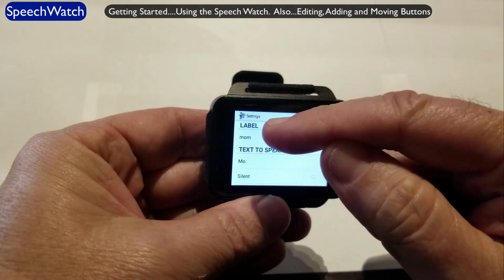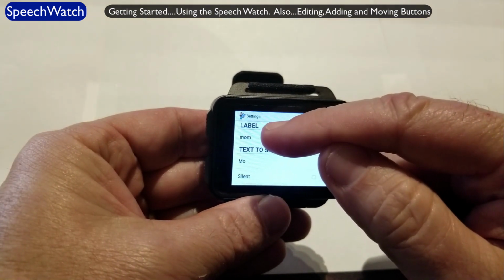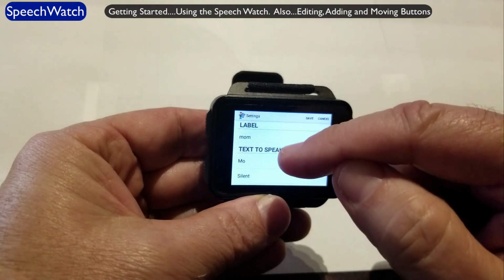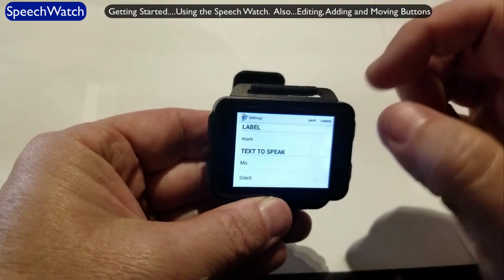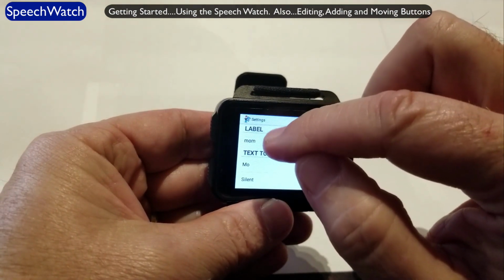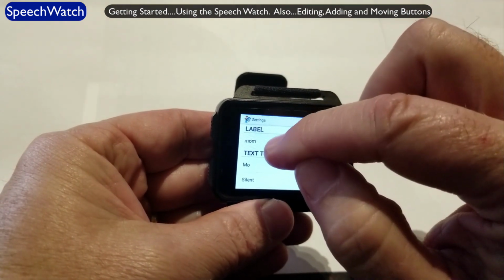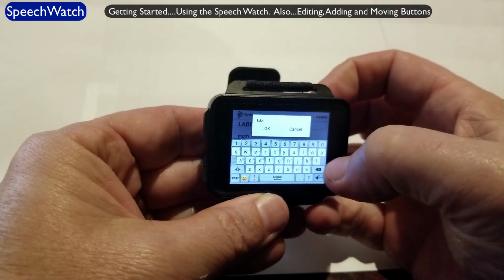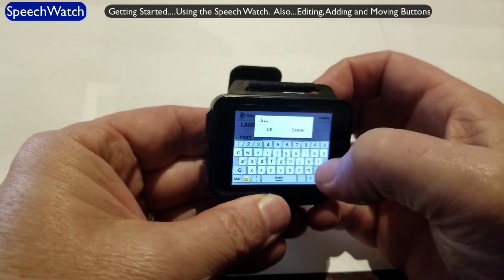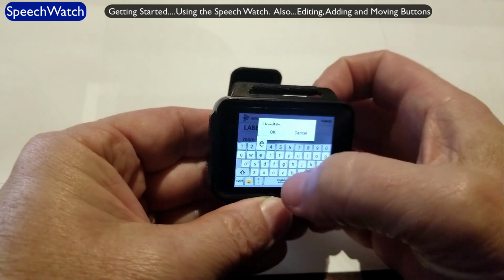This under label where it says mom, that is what's appearing on the button. Text to speech is different, or it can be the same. It's completely up to you. So the label may say mom, and I may want the text to speech to say, I love my mom.